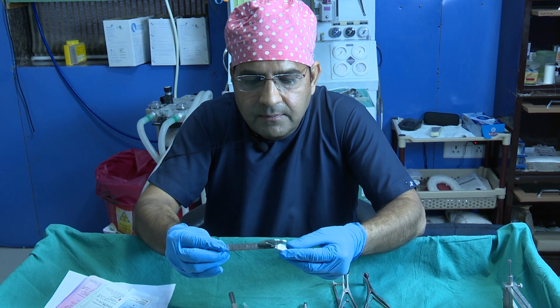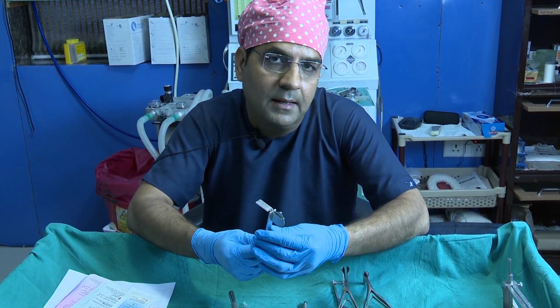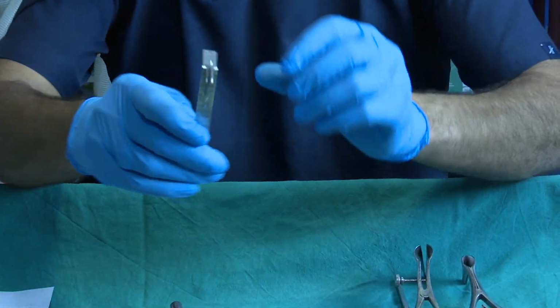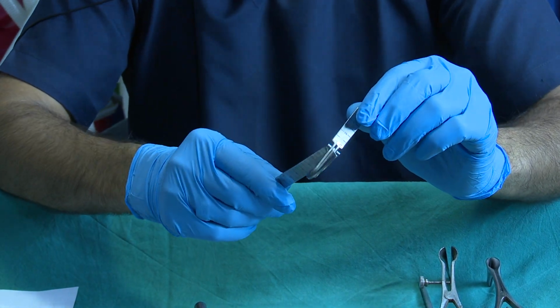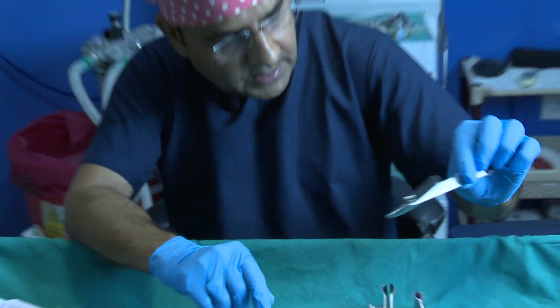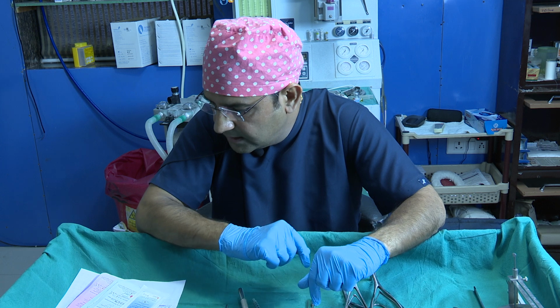Again this is the instrument for the measurement of angles, pre-operative and post-operative, for the nasolabial angle measurement and for the nasofrontal angle measurement. So this is a good instrument. These are some advanced instruments that you can purchase later once you start the practice.